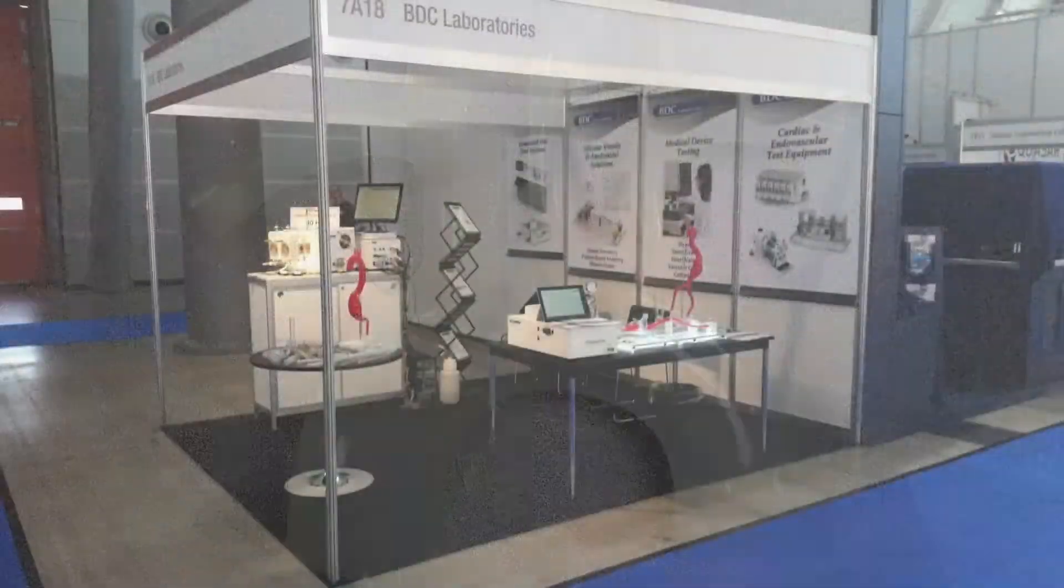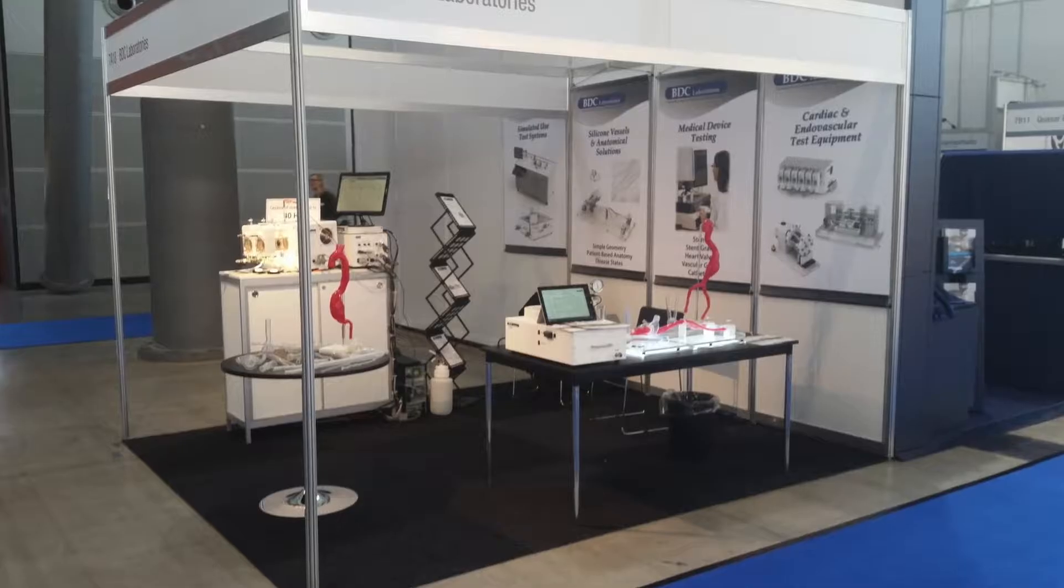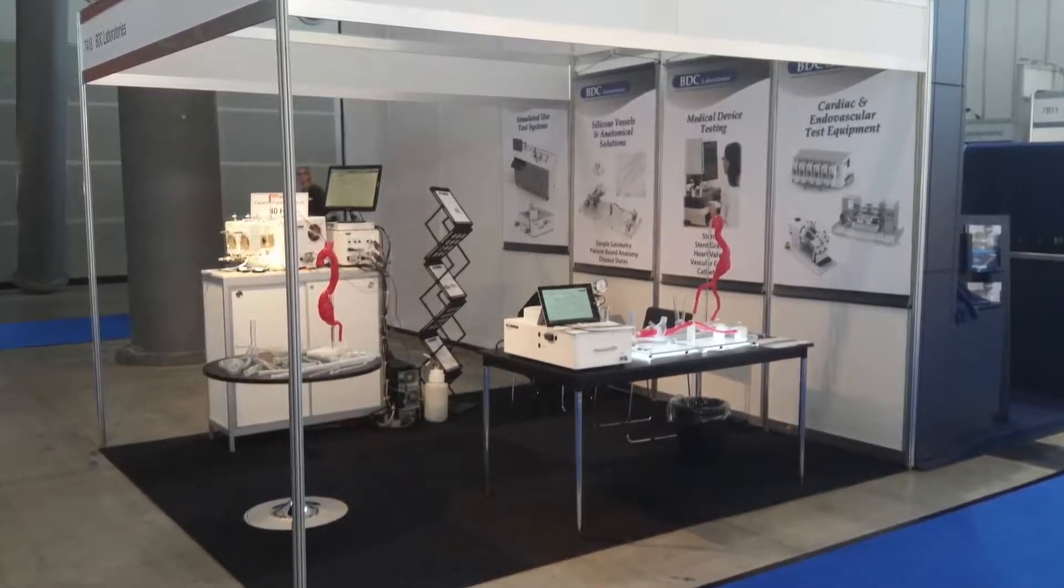For more than 30 years, BDC Laboratories has been a leader in cardiovascular device testing and product development support.